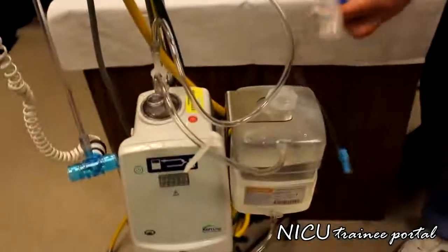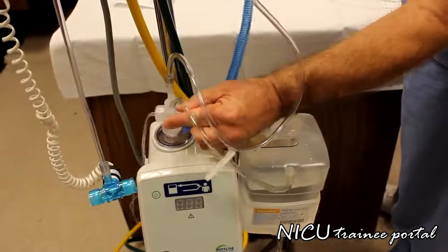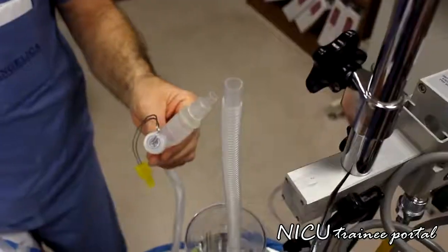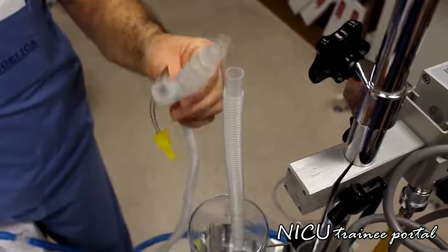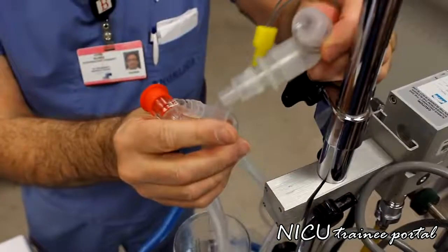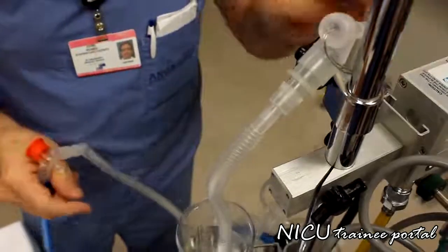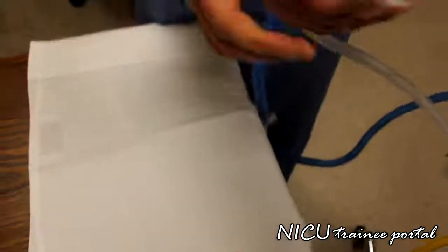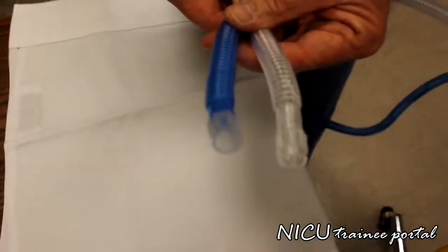And so we take the breathing circuit and we take the inspiratory limb and put it on the humidifier outlet. Then we take the expiratory side of the CPAP circuit and we put it on the expiratory side to the CPAP canister. So we take the patient Y off, and these are the 2 ends that we actually attach to the CPAP prongs.